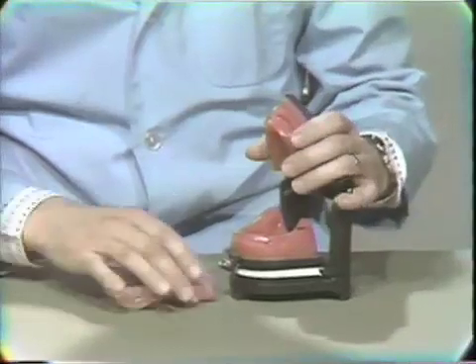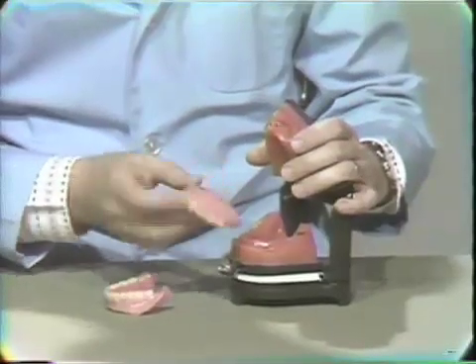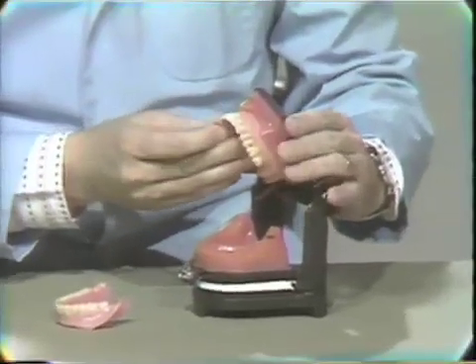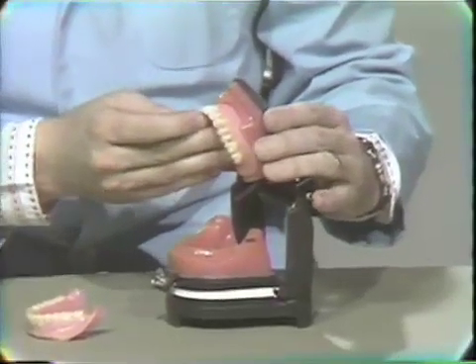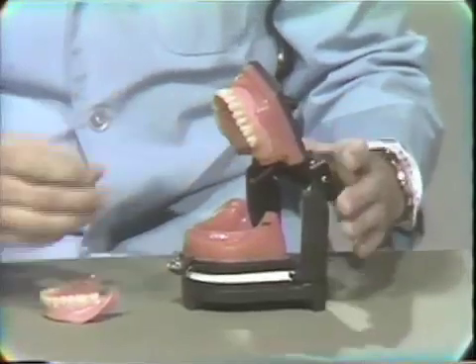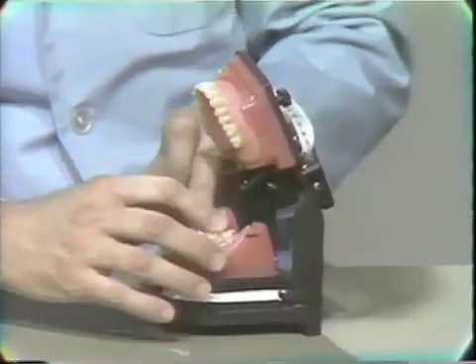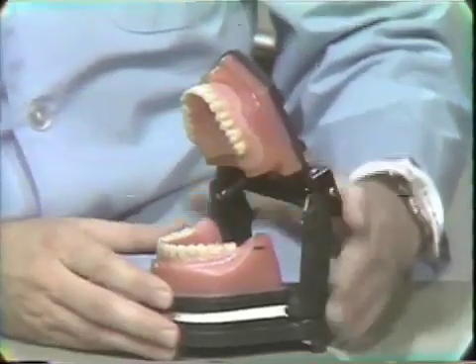This being our patient again, we have our completed upper. Everybody has a completed upper denture, and they should fit nicely back onto the mannequins. But unfortunately, the maxillomandibular relationships aren't good enough to use as an exercise, so we're going to do it a little differently. Clinically, this is what we do.